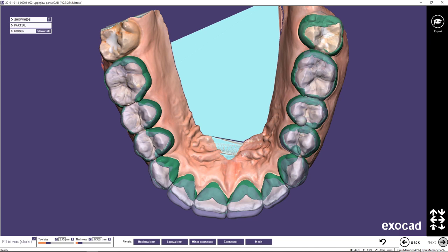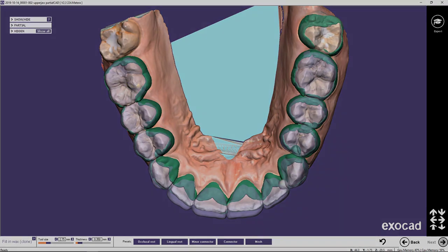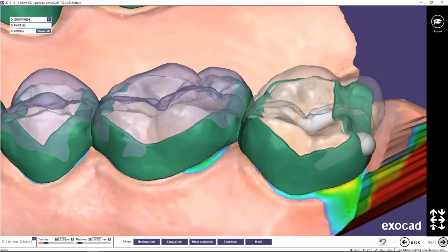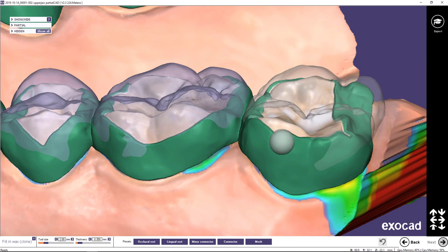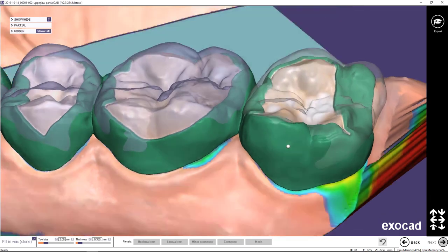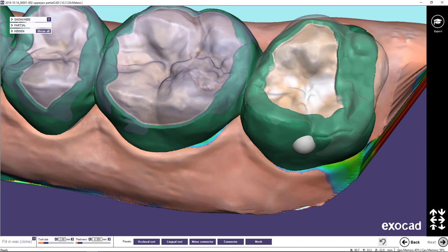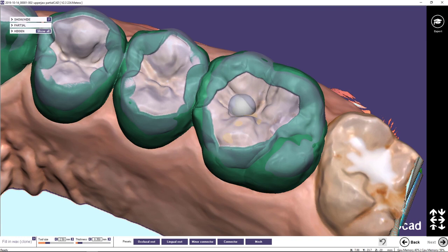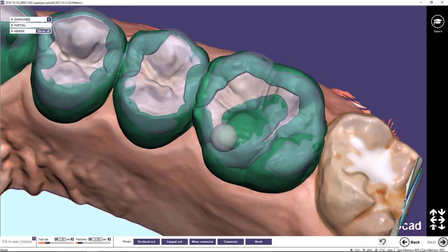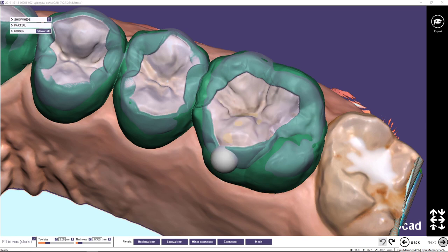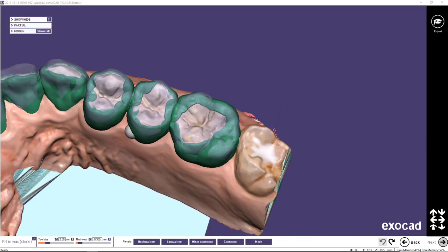If you have areas where you fear the minimum thickness might not be reached you can use this tool to draw on the teeth to set it up. You can see the difference between the anatomic shape set up in dental CAD and the green wax being drawn right now. You can also add material to the occlusal area to guarantee your minimum thickness there, but this way you lose the dynamic adaption of the virtual articulator, so I don't recommend doing that.